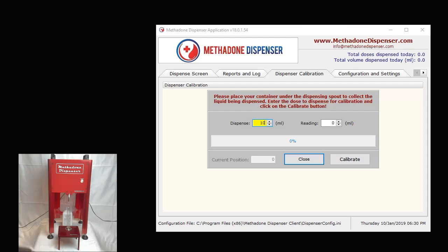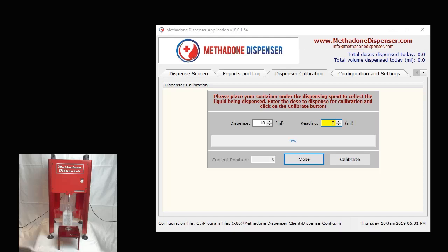What that allows you to do is to manually look at the value in your measuring cylinder to confirm whether what the machine thinks it has dispensed as 10 ml is actually in reality 10 ml. Should that not be the case, then this is what this reading stands for. You are going to dispense 10 ml of liquid, and once the dispense is completed, you are then going to enter the reading from your measuring cylinder on what it actually dispensed.